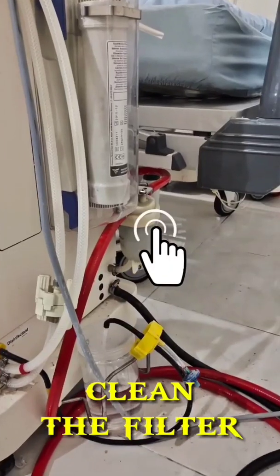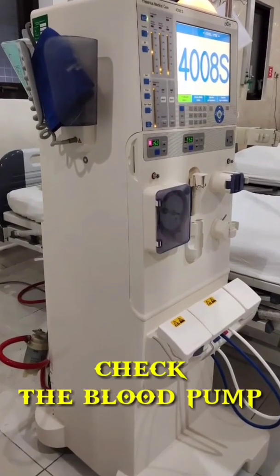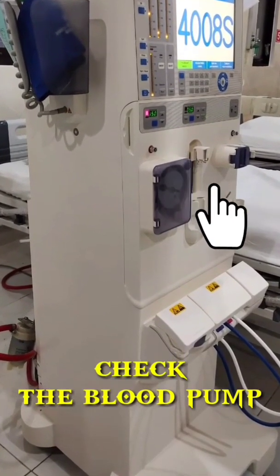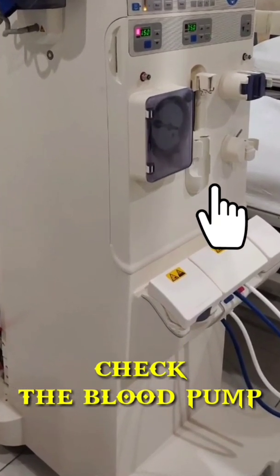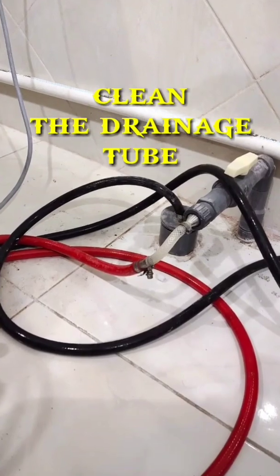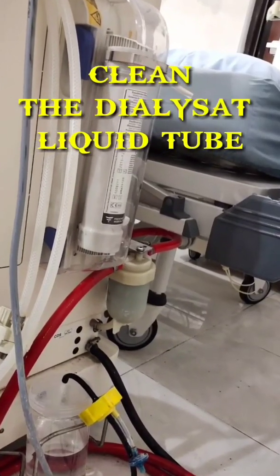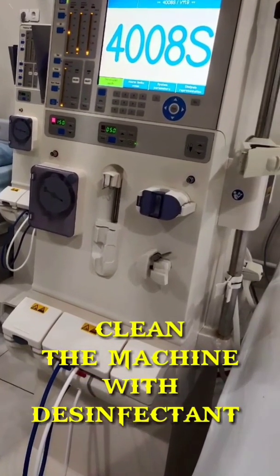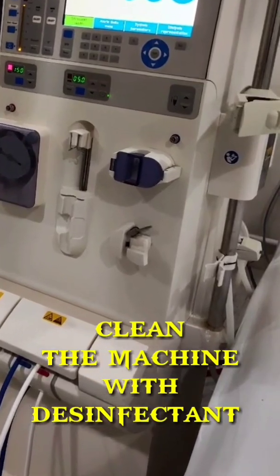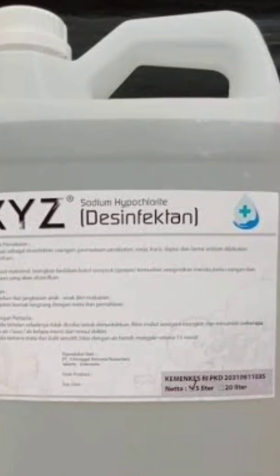Number 6, clean the filters. Number 7, check the blood pump for impurities so as not to disturb the rotation. Number 8, clean the drainage tubes and dialysate liquid tubes. Number 9, clean the tools after use with a disinfectant solution mixed with water, then put it in a spray bottle.